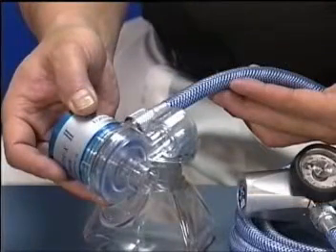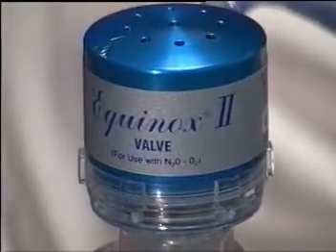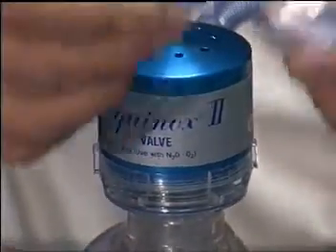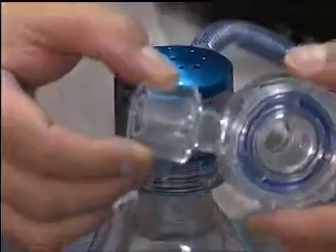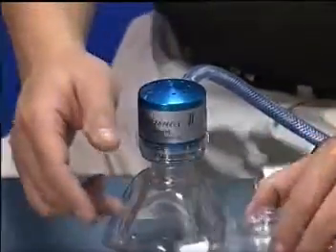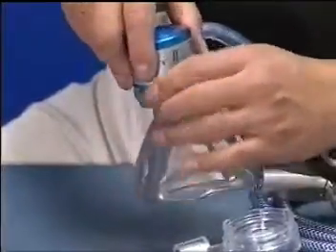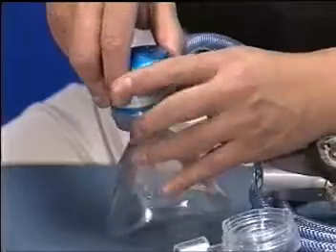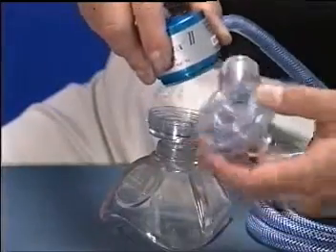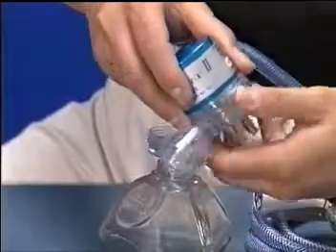The scavenger adapter has been specifically manufactured to fit only the O2 system's product line. It is comprised of an adapter that replaces the standard patient valve swivel housing of the Equinox II administration system demand valve.